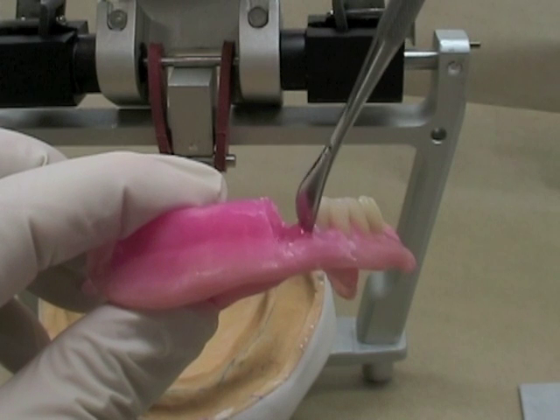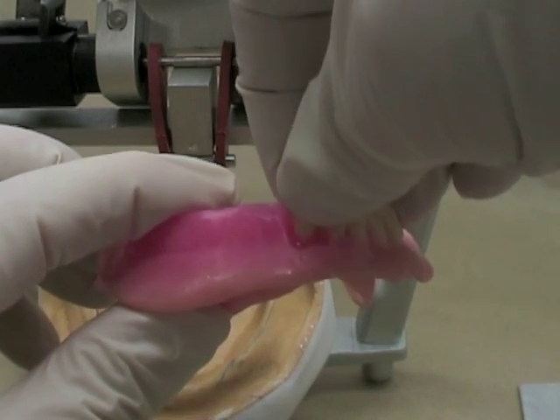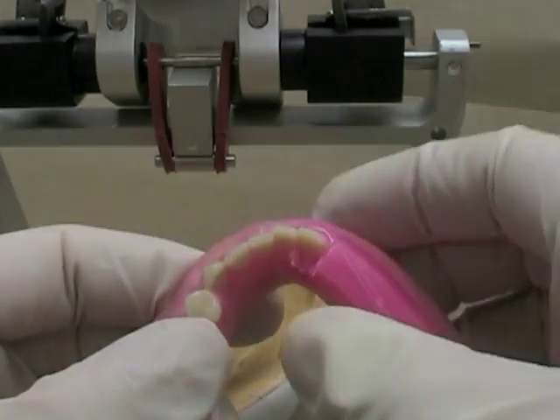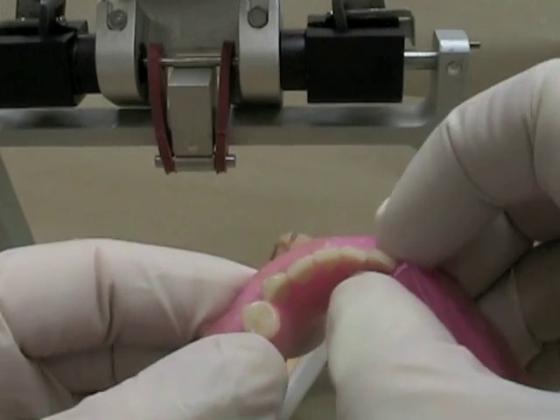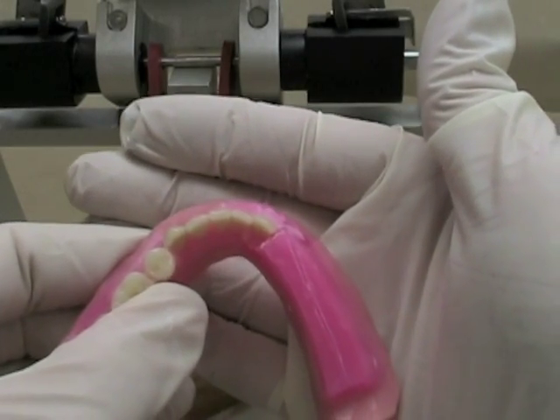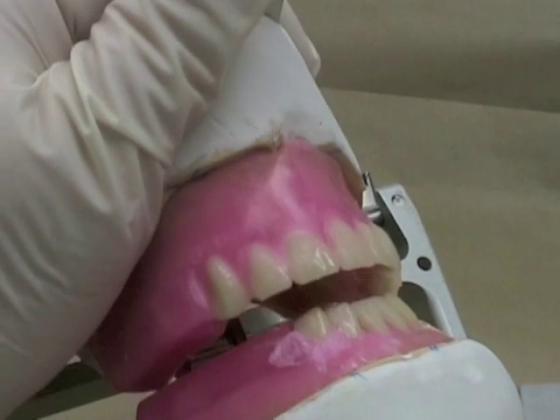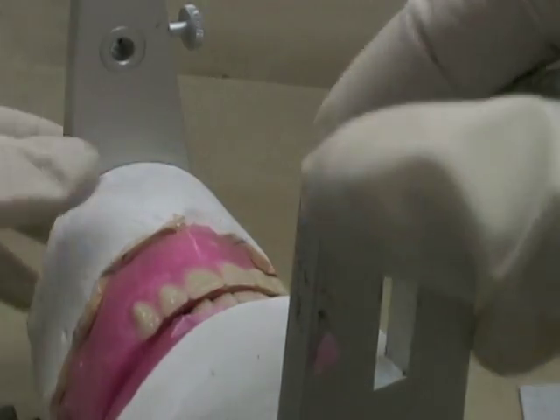Making my wax molten right up next to the adjacent tooth. Seating the lateral incisor in the molten wax, making sure the incisal edge is even. Looking from above, trying to make sure that I get the angulation of the teeth as they come around the corner so it's not flat, so that it complements the arch form that the patient has. Trying those back on my articulator and taking a look at both the axial alignment and my overjet — things are a little bit skewed, so I've got the tooth at a bit of an angle and I'm going to change that.